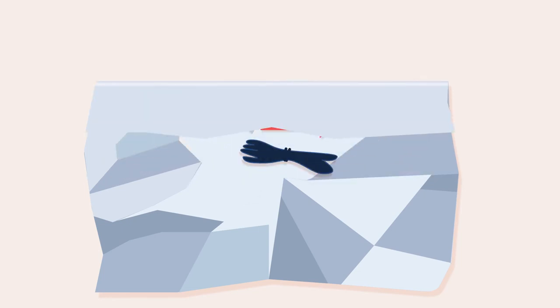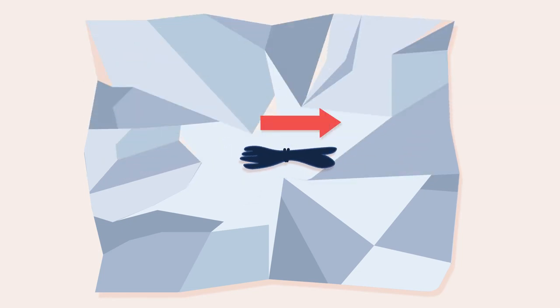The foil needs to be large enough to fold over the length of hair. Position the hair so that it lays straight. If your hair is very long, make sure the hair is curled around. Fold the foil over the hair so that it does not move around too much.